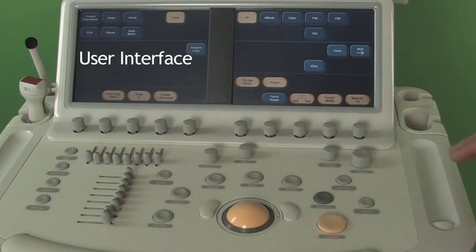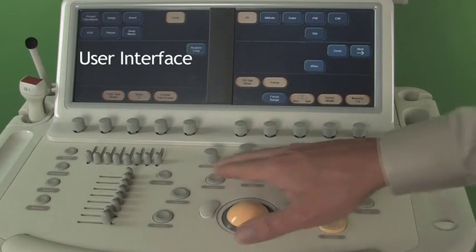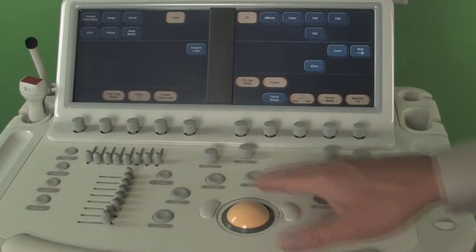The keyboard is laid out with your trackball in the center with most of your functions you'll use constantly around the trackball.